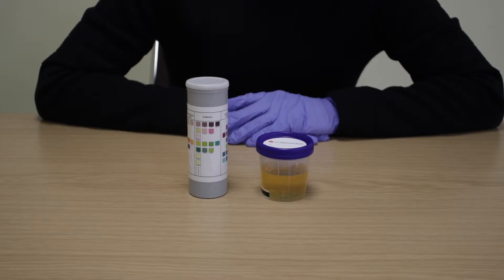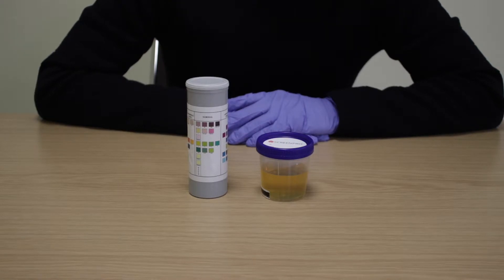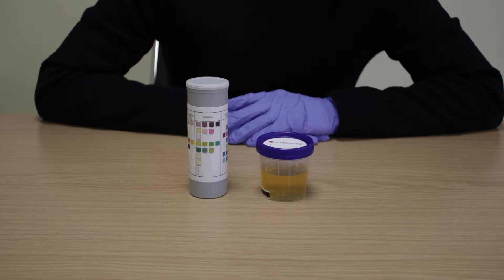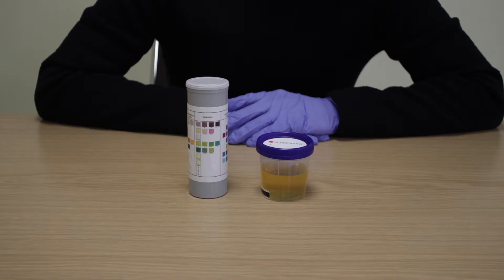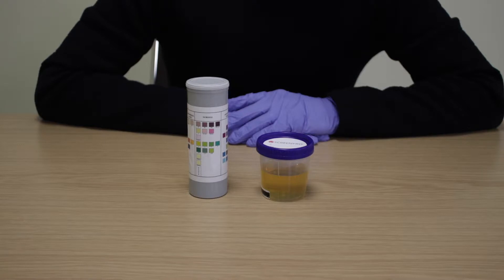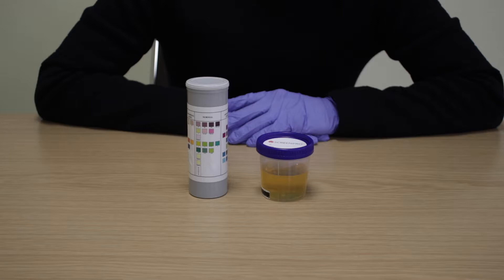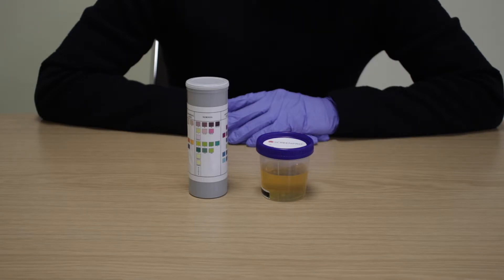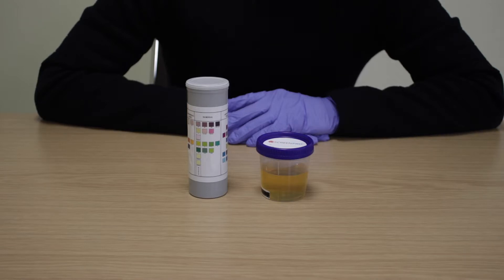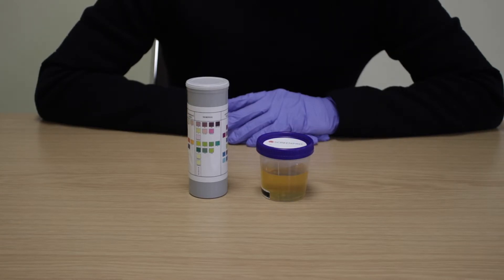Adulteration test strips, sometimes known as specimen validity tests, are a rapid one-step screening test used to determine if a human urine sample has been adulterated, tampered with or diluted. The strips simultaneously detect the presence of seven parameters. The test strips work based on the color derived from the chemical reaction between the chemical reagent on each test pad and the urine sample, giving a semi-quantitative result via a comparison color chart.